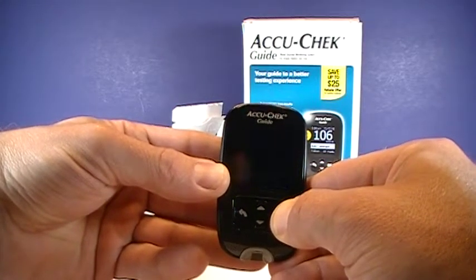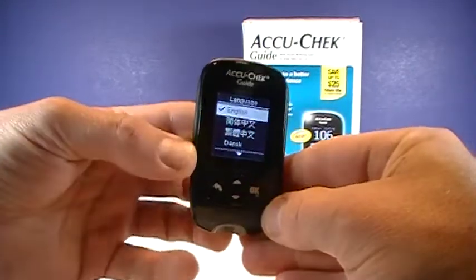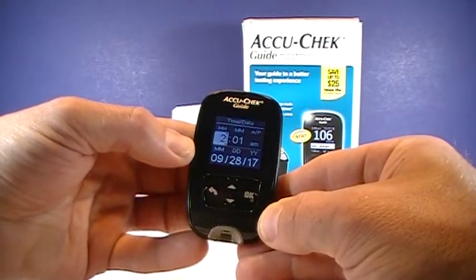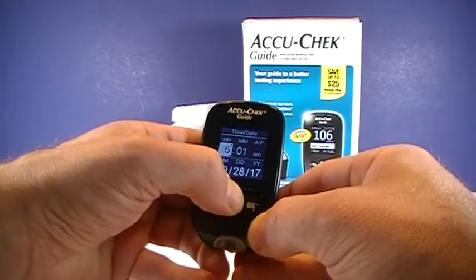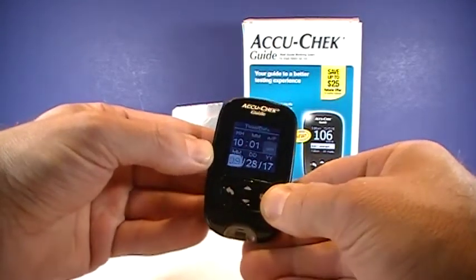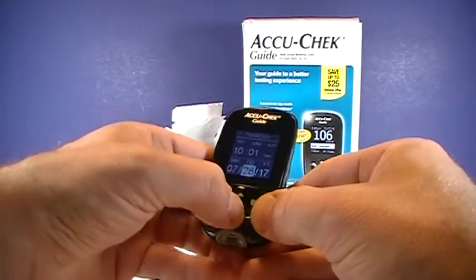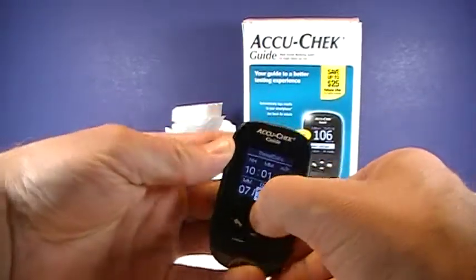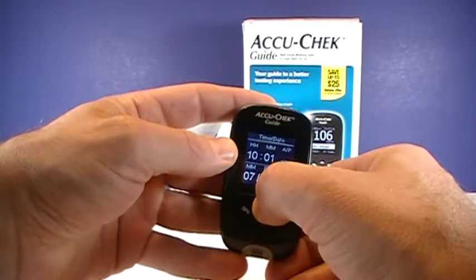So you can shut it down, and then you can hold the OK button. It may ask you the default language, so you can go ahead and pick your preferred language. And now it's going to ask date and time. There's our hour — so it's about 10 o'clock here. We're going to go 10 a.m., and it is July 20th, 2019. You can just use the up and down arrows.